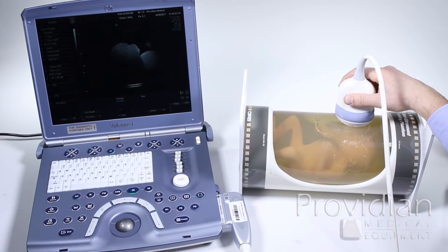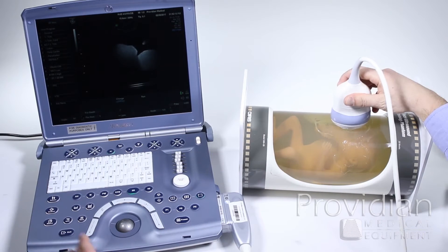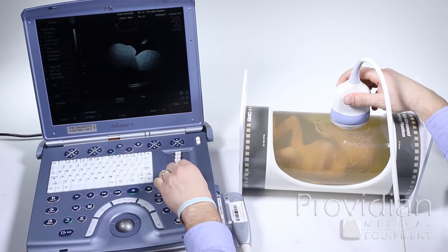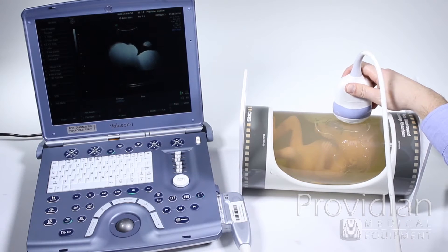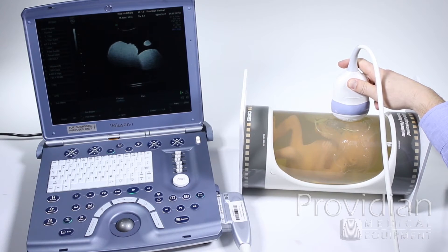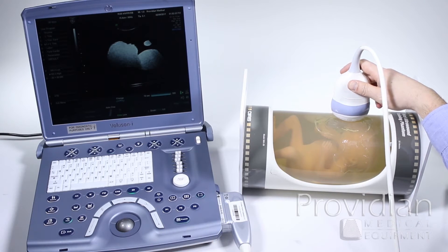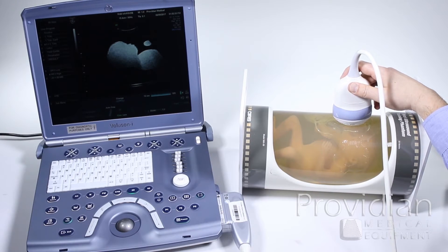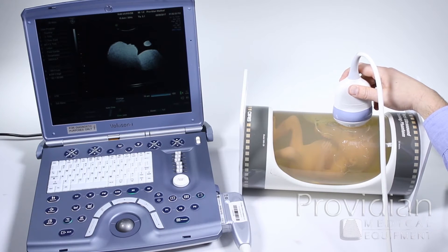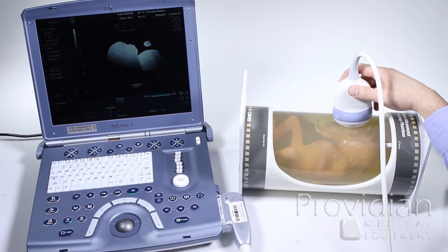I'll turn up the gain high so my 4D image isn't going to be great. The probe marker is here and I'm pretending the baby is in the vertex position, or head down. This is a baby phantom so I can get a perfect image every time. Usually there is some sort of placenta, arm, hand, or something in the way. If there is any bone in the way of that baby's face, when you get to 4D it will either create a shadow over the baby's face, an umbilical cord on the face will make the face look a little bit deformed, and placenta will make the face blurry, grainy, or you won't be able to see anything at all.